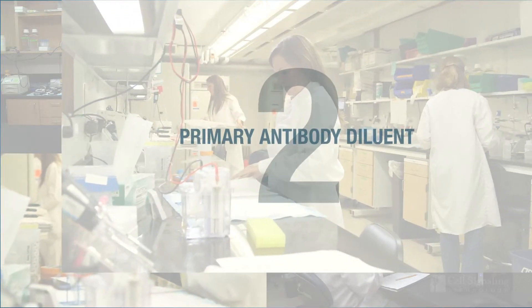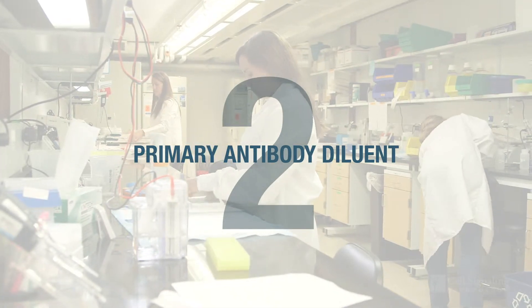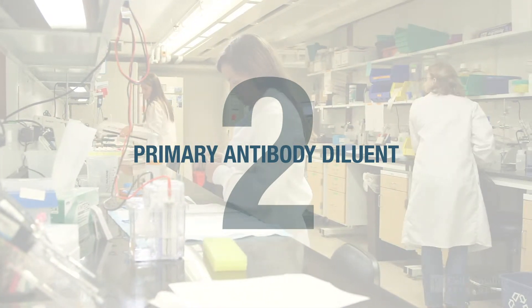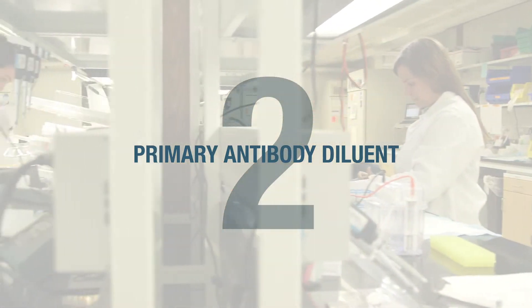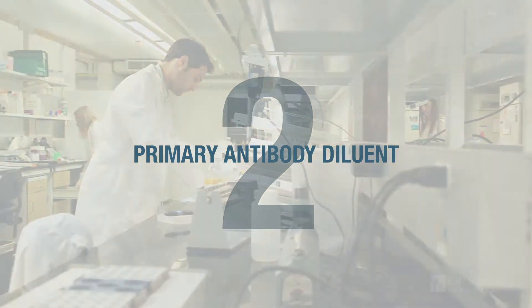This is part two of a four-part series of videos on how to optimize your immunohistochemistry protocols. If you've got your tissue prepped and ready to go, we'll move on to the next steps in the staining protocol.